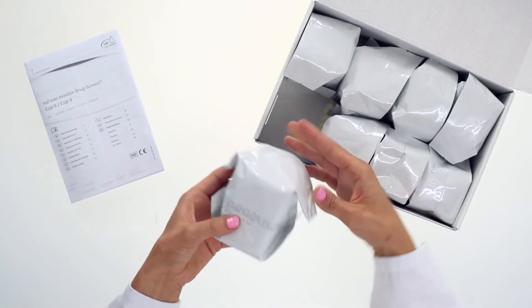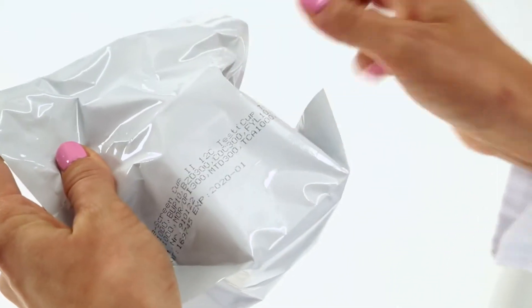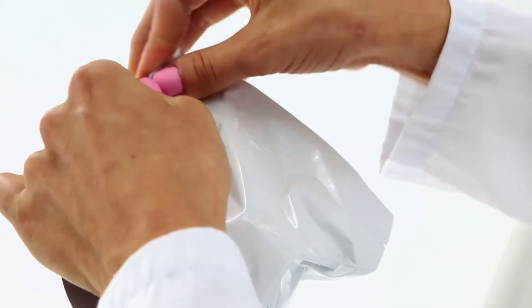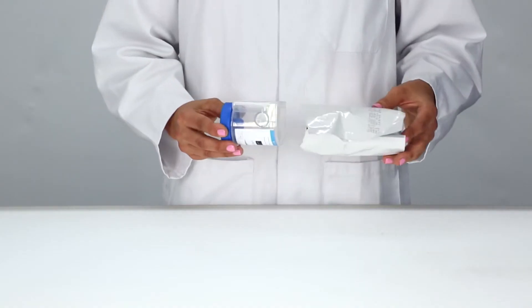Do not use tests with damaged pouches or beyond the stated expiry date. Use the test immediately after removing it from its pouch.